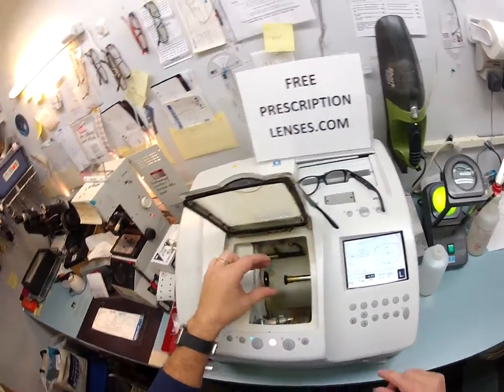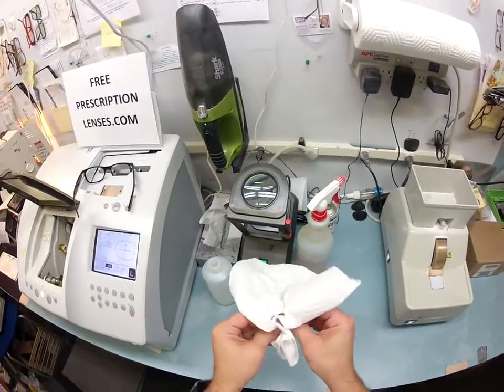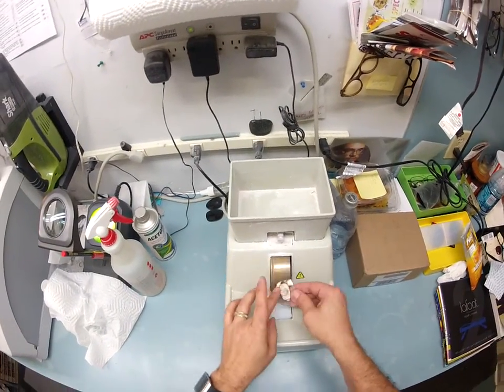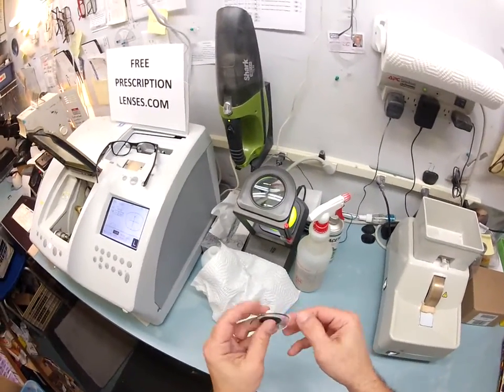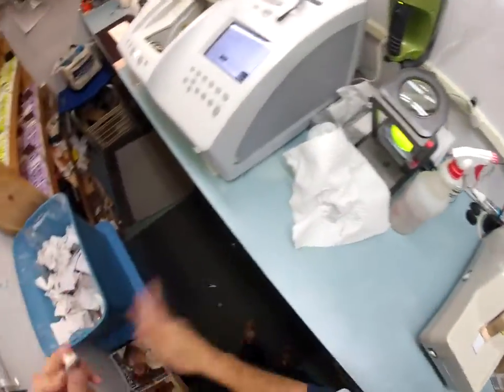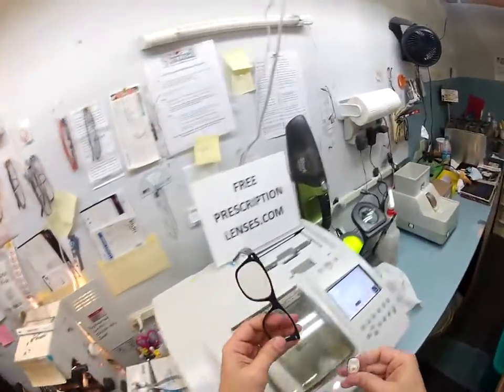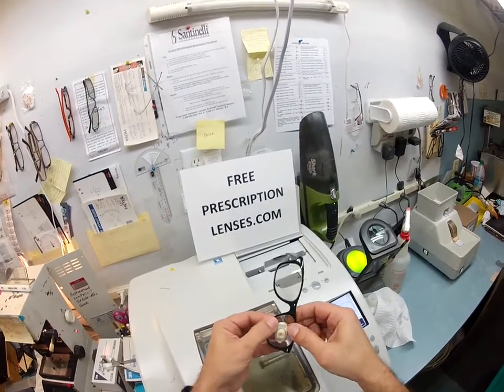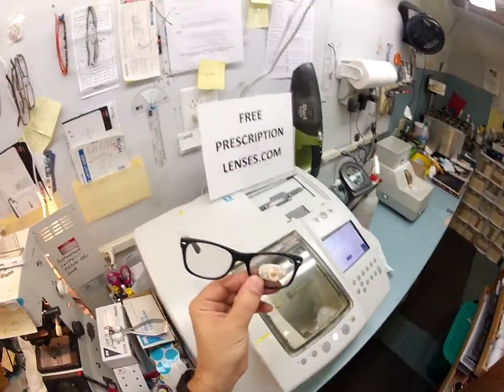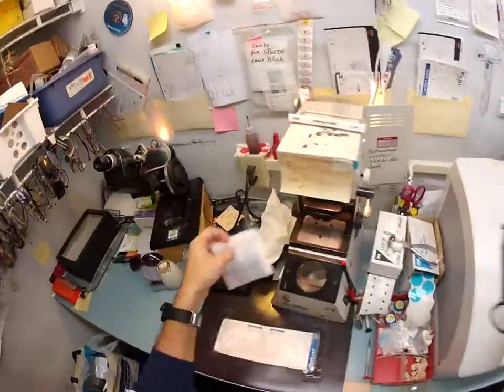Out of the chuck it comes. Let me dry your lens off again. I'm going to put the safety bevel onto the lens using my V-shaped thumbnail — my occupational thumbnail, as my friends call it. Wipe away the schwarf and then onto the floor. To pop the second lens in, I tuck it in at the outside corner, and with my thumbs pushed down at the nose, it snaps right in. This is an unbreakable lens — you will not hurt the lens by popping them in and out. The glass lenses, you want to be careful not to drop on the floor; they will break.